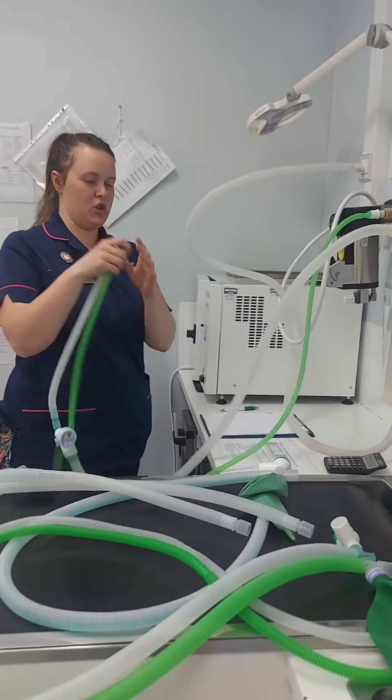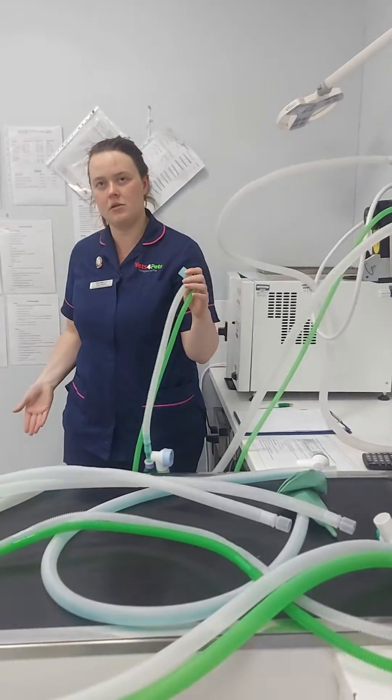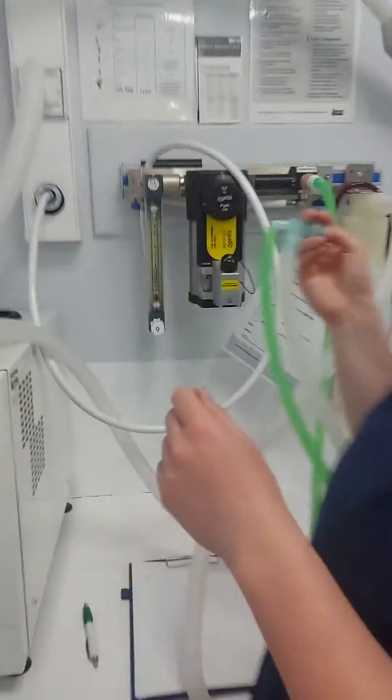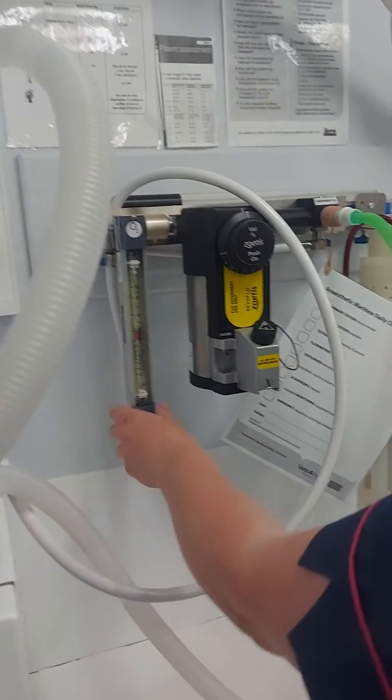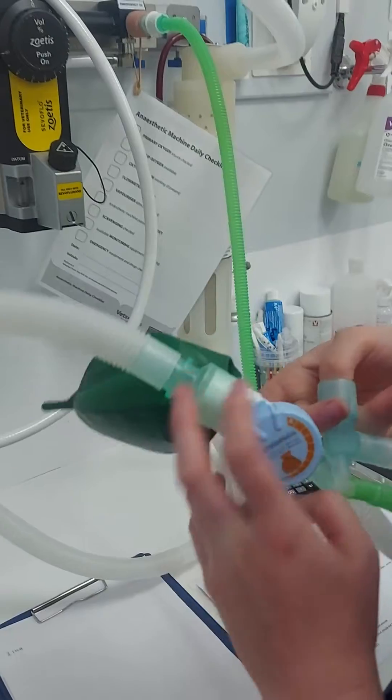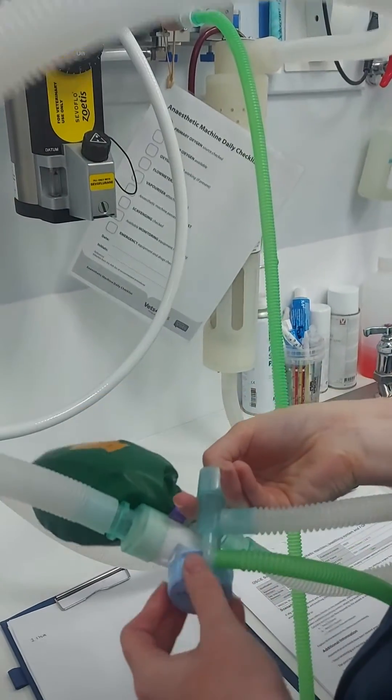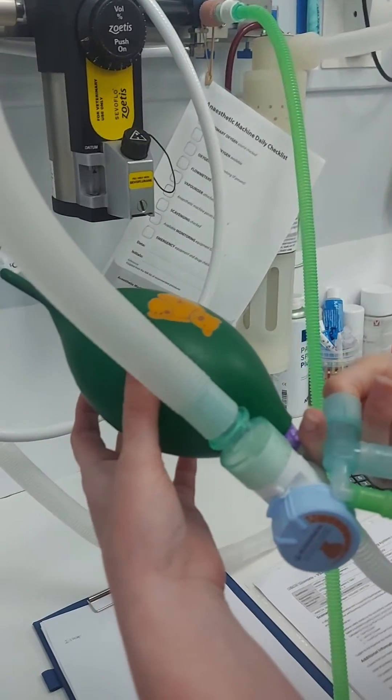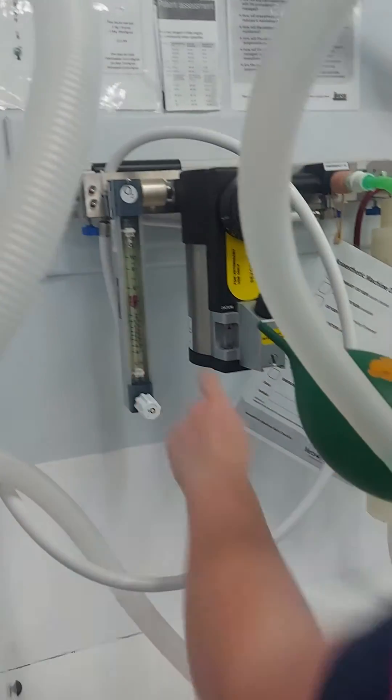Okay, anaesthetic machine check. Okay, so one up. Shut. Watching for that dropping. And it's not.